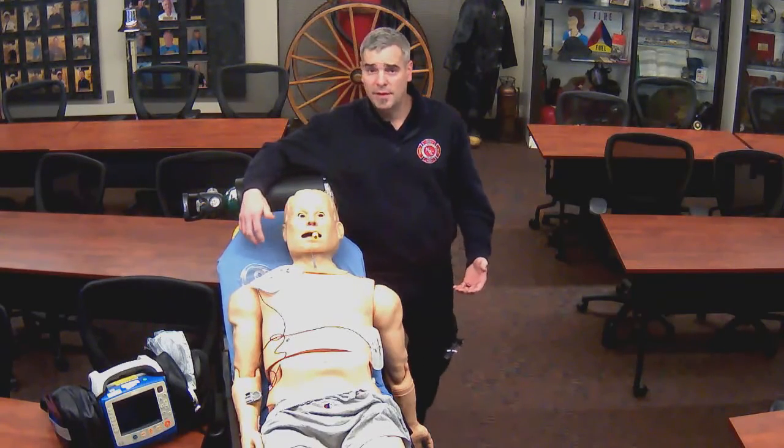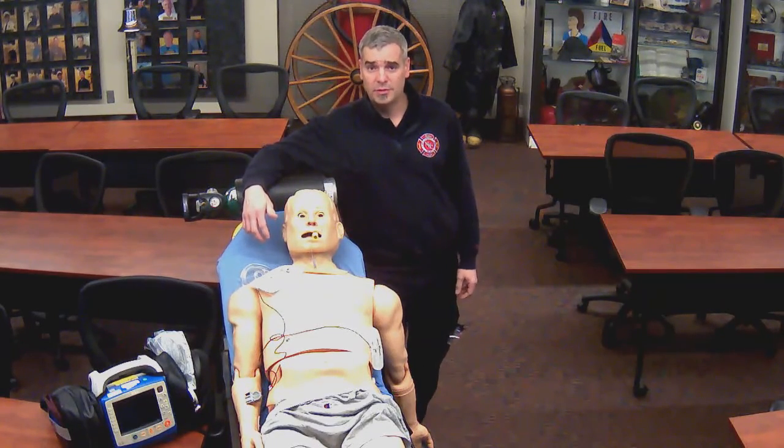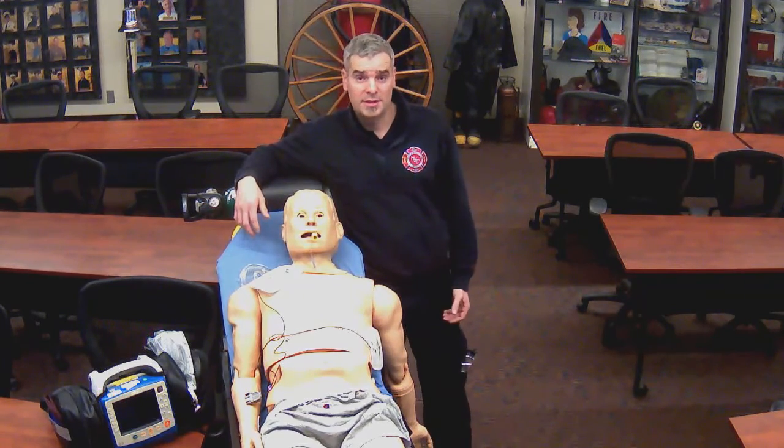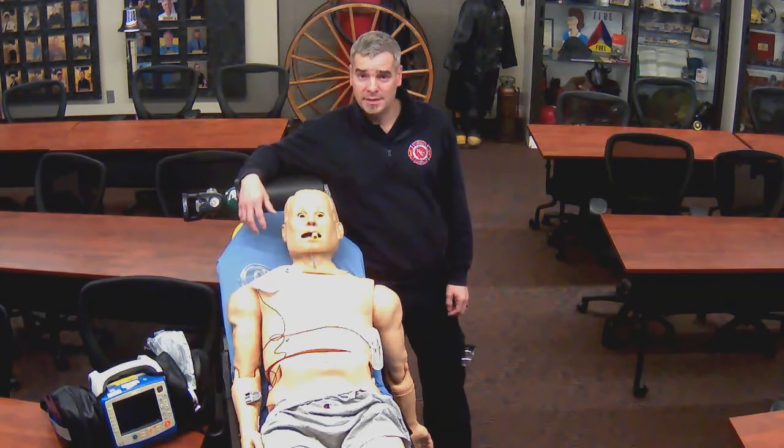Today we've covered vitals uploads, 12-lead transmissions, ETCO2 monitoring, synchronized cardioversion, and pacing.